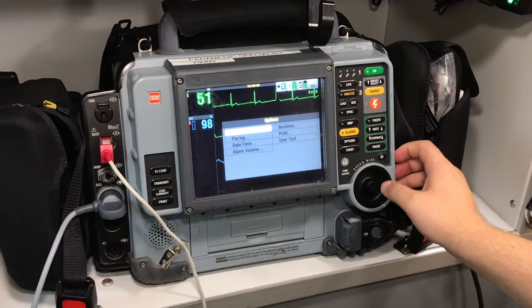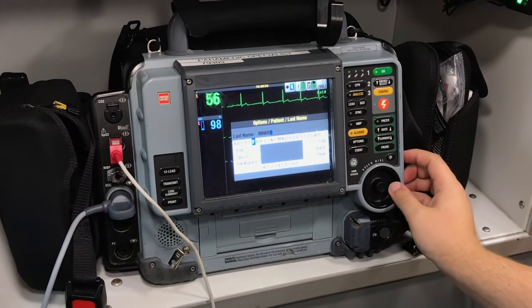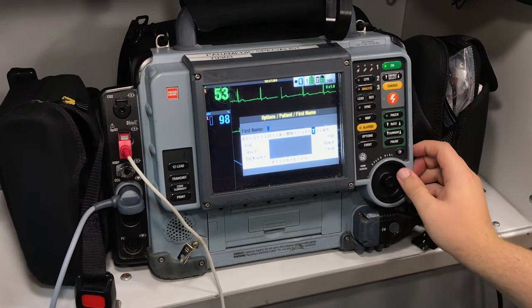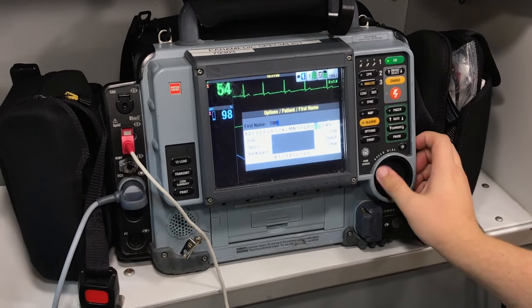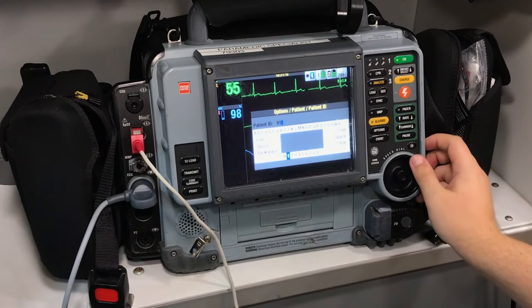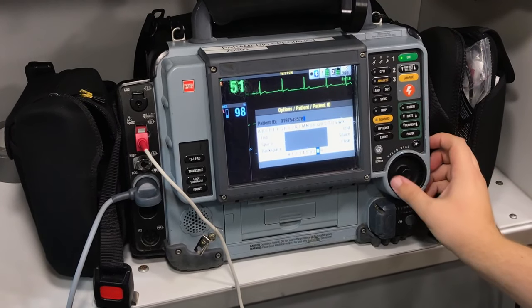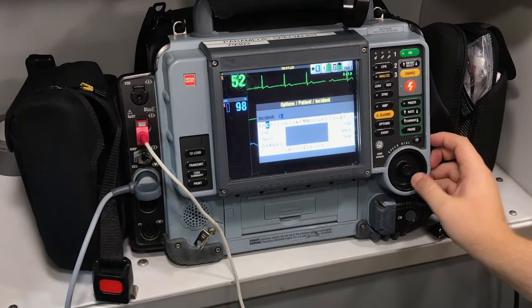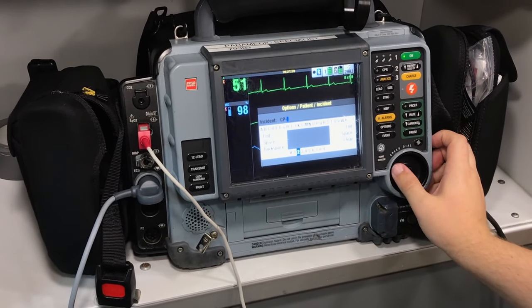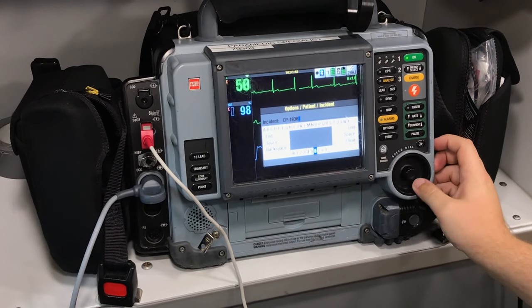Prior to transmitting, we want to hit the options button. Enter the patient's last name, first name. We're going to get the PHN number in. And we want to insert the onset of chest pain. To do that, we're going to hit CP at — for example, 10:30.